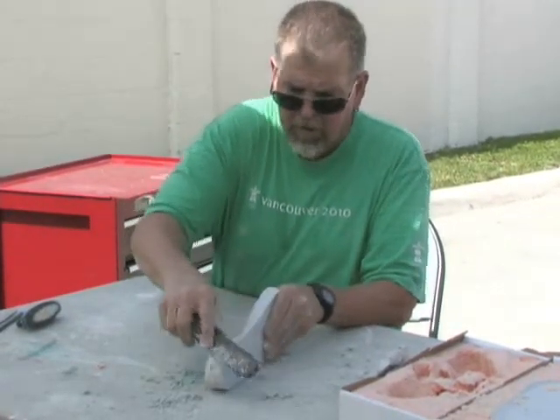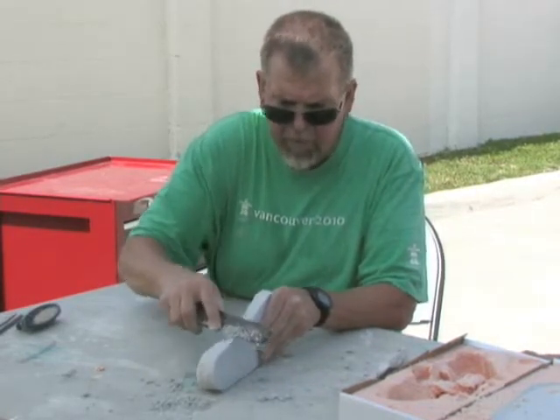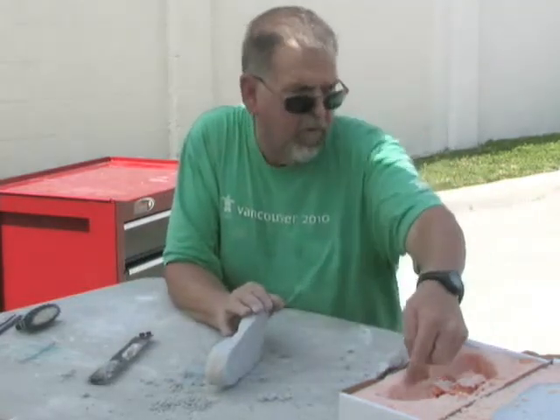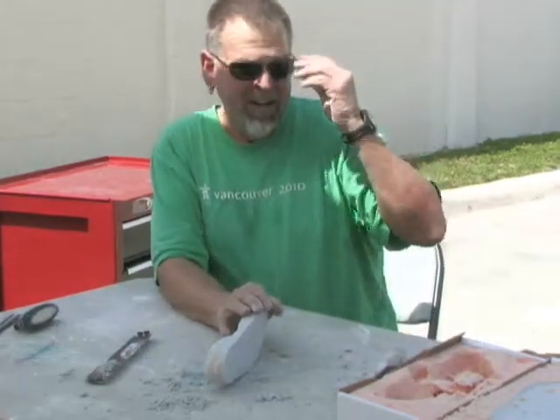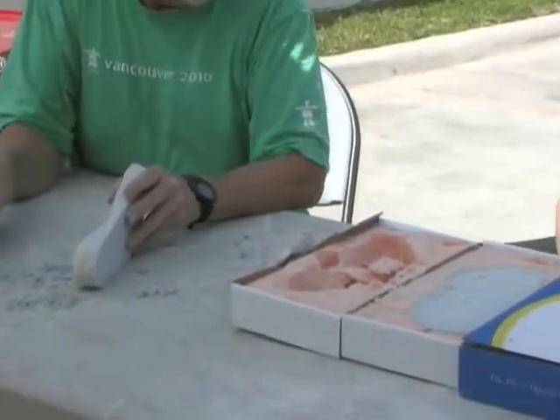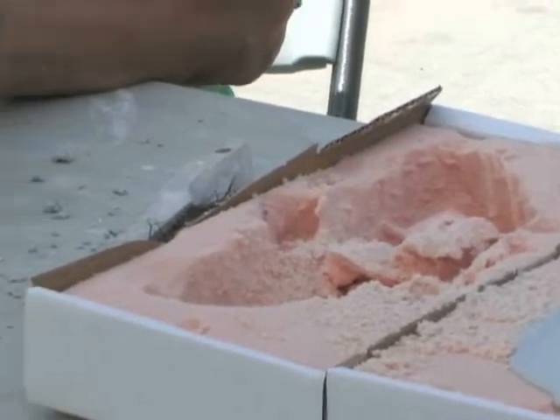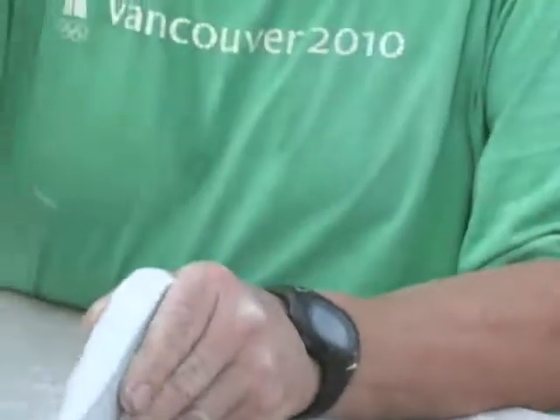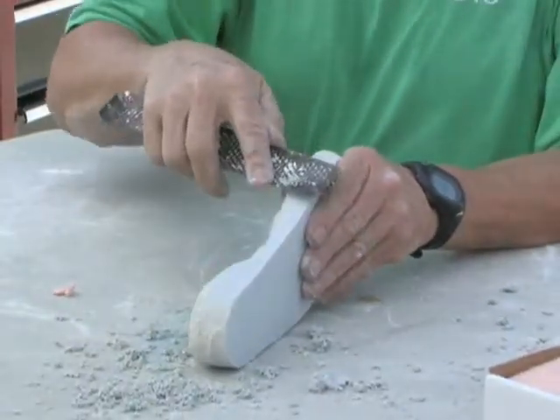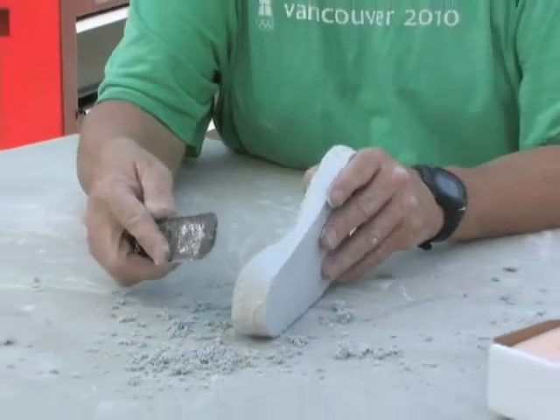I'm exposing your foot from all this extra plaster — this is just where the wet plaster went into the edges of the foam. I can't leave it like that because it'll make your foot incredibly wide. I'm running down here and deciding that I want to push this instead of pull — that makes no difference, you can go either direction as long as you're getting it done.